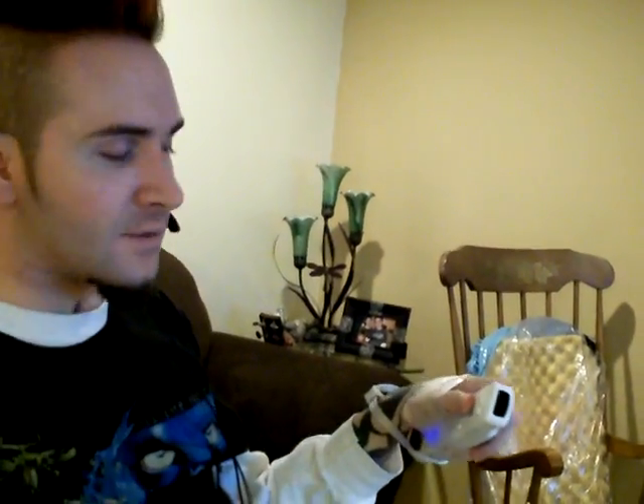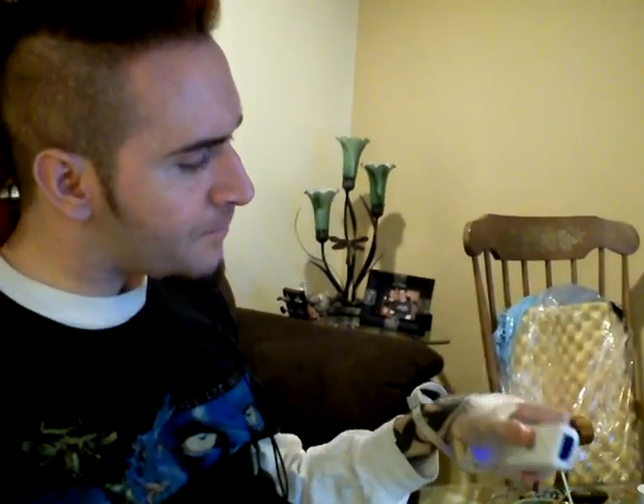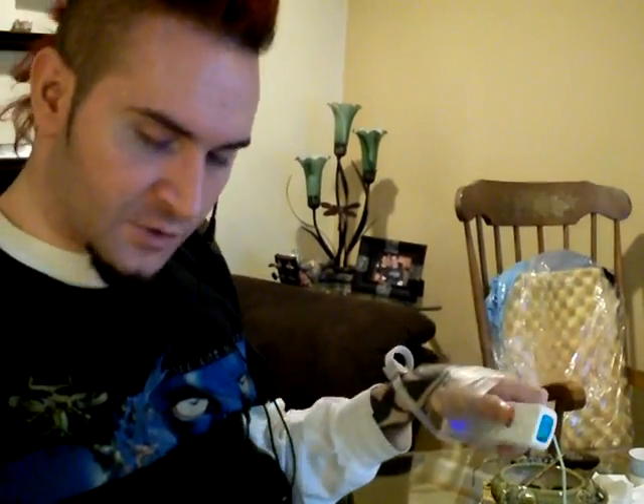Got the box back, batteries charged. I taped my hand around the Wii controller and got my thumb over the A button. The electrodes are in my arm and the controller is on my right shoulder. See the wires? They go out the shirt into a box in my backpack.